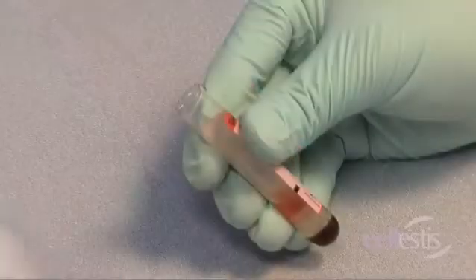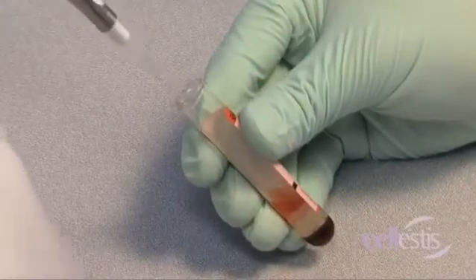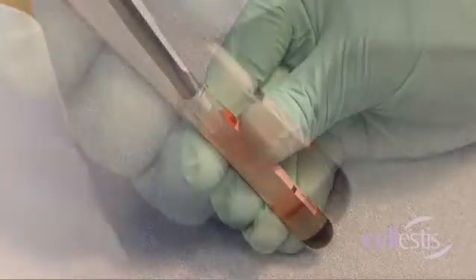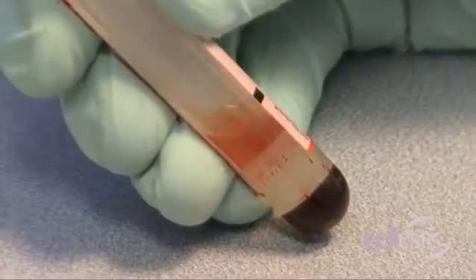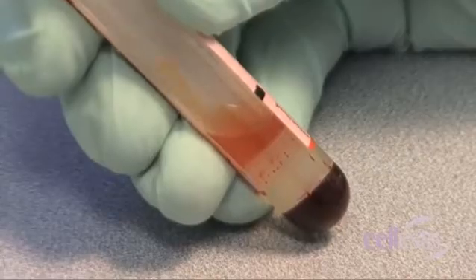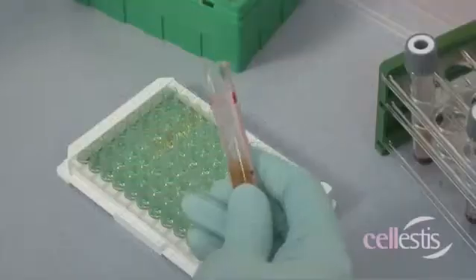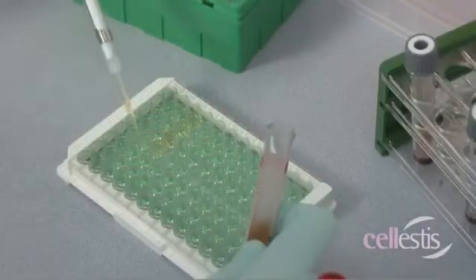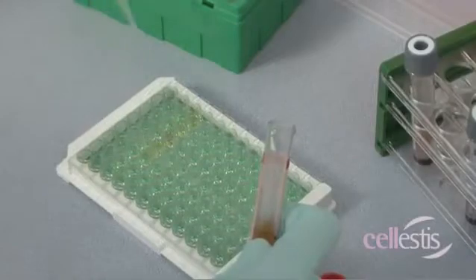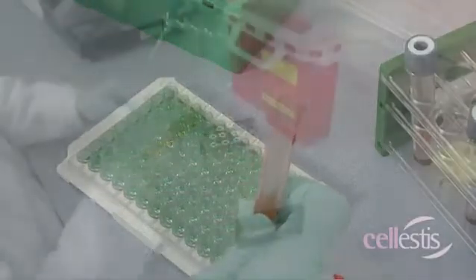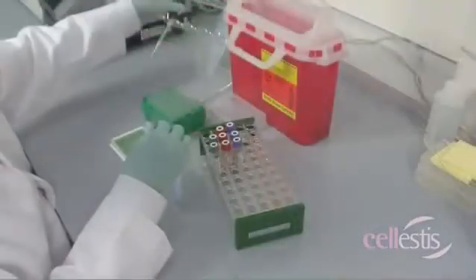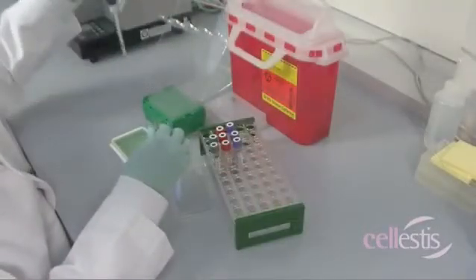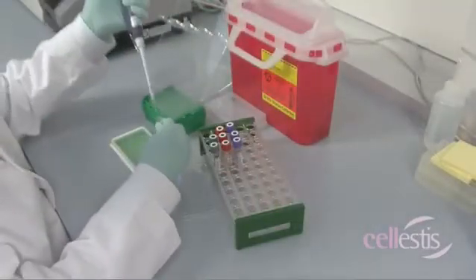Plasma samples should only be harvested using a pipette. Plasma samples can be loaded directly from centrifuge blood collection tubes into the QFT ELISA plate, including when automated ELISA workstations are used.